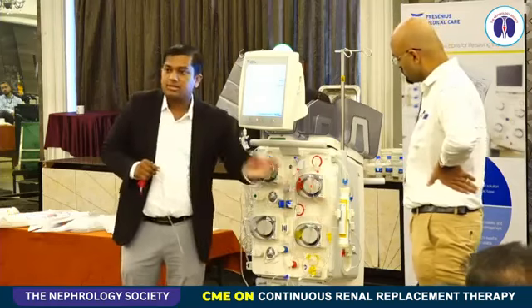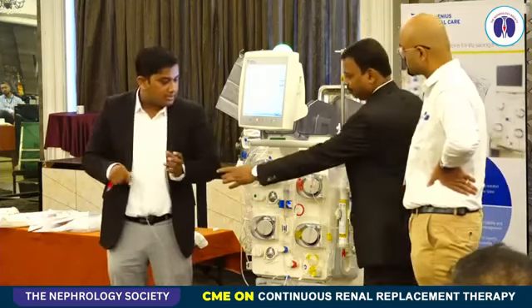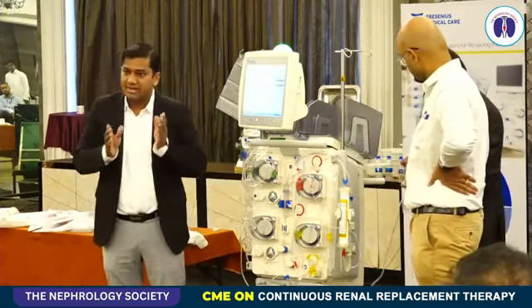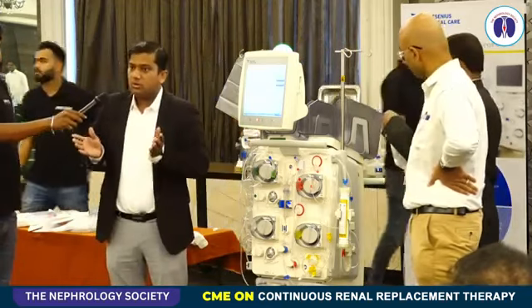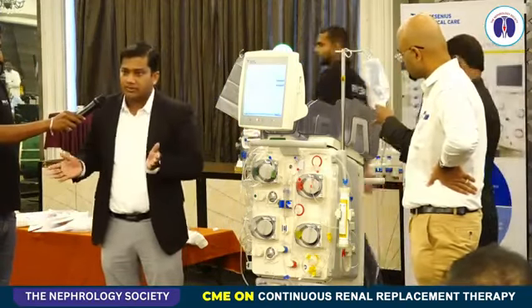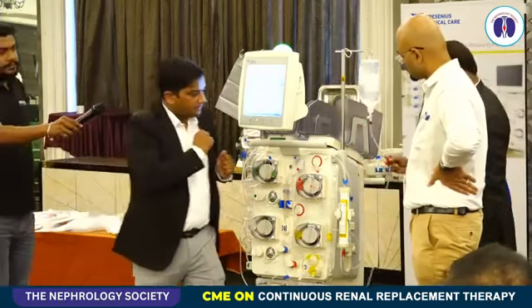The dialyzer is a hemofilter, an ultra flux filter. It has a surface area of 1.4 square meters. It's a negatively charged membrane with a hydrophobic nature, so not hydrophilic, unlike other membranes. It's a hydrophobic membrane which repels the fluid from the membrane. So let me start the priming first.